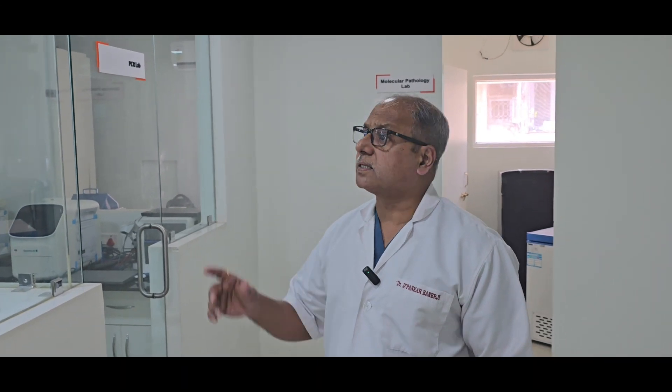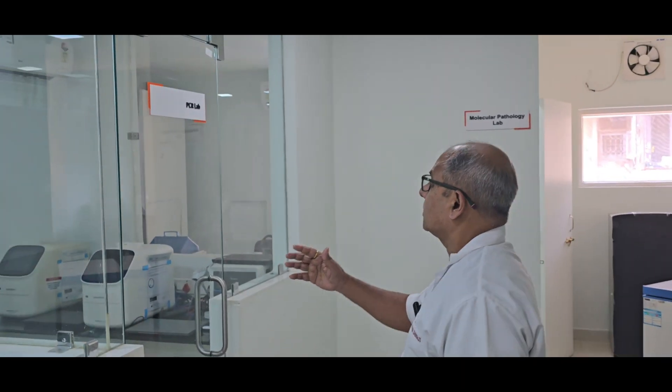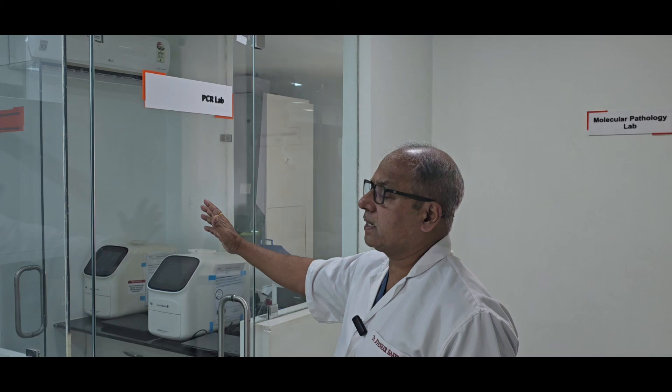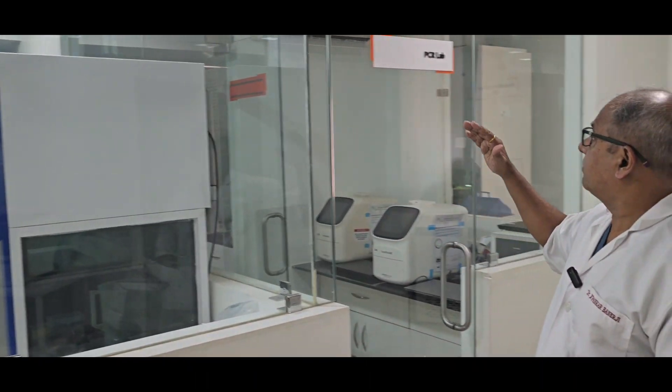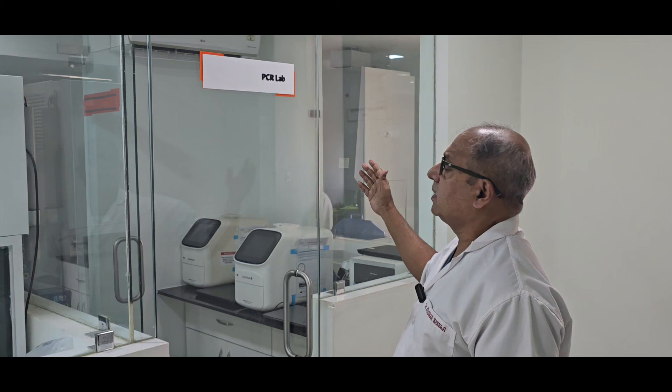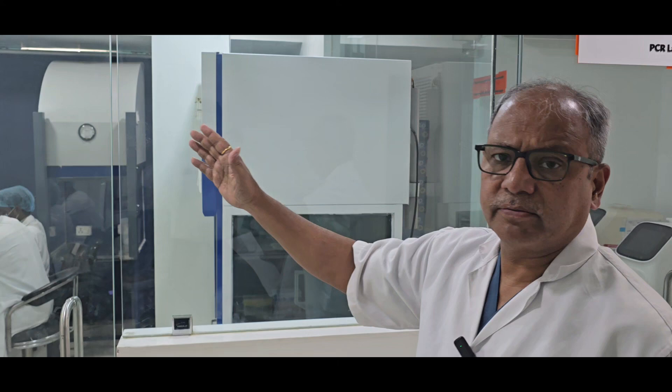I am Dr. Dipankar Banerjee and this is from my genetic lab at Ideal Fertility as Ideal Genomics. This lab is divided into two parts: one is the infectious part and another is the genetic part. In the infectious part, we do all infectious pathology, molecular typing of viruses and bacteria. In the genetic part, we do exome sequencing, NIPT, PGT, PGTA, NIPGTA, SR, and there are a lot of other things.